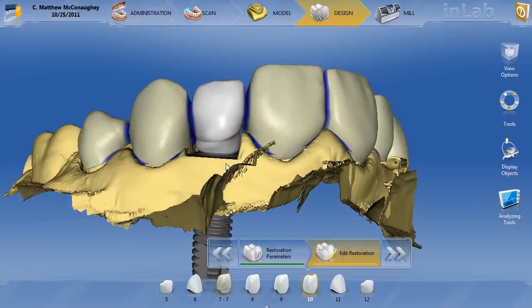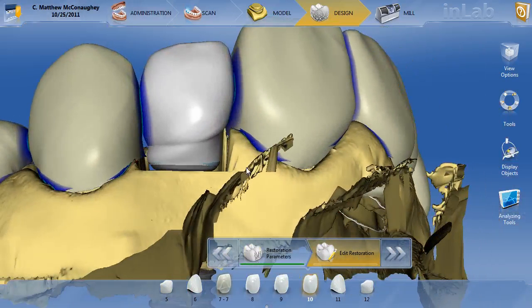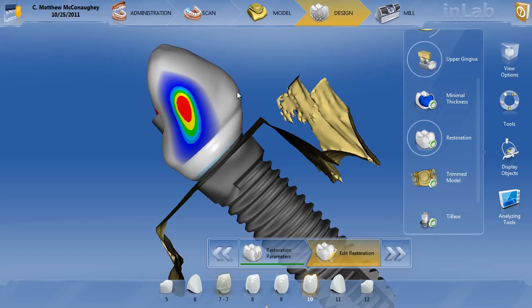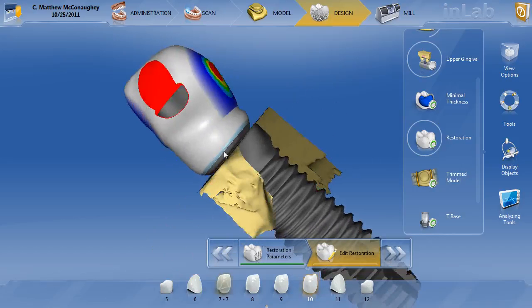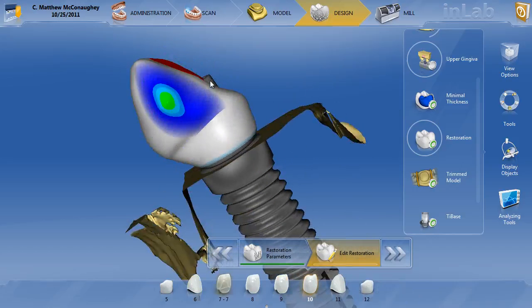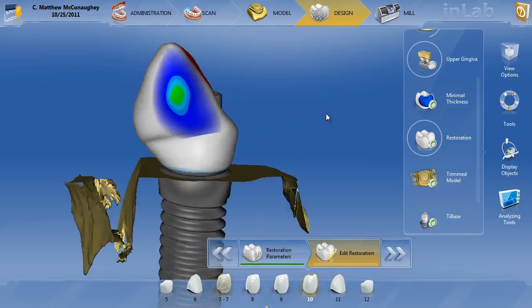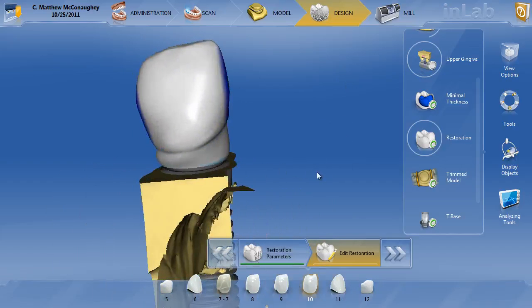Here's the final design of the full contour tooth before the split. It took actually quite some time. Basically I'm just using the two-dimensional shape tool and the form tool. Let me go ahead and trim the model — you can see what I did here is I basically formed a nice flowing emergence through most of it. I've got a little minimal thickness issue down here. I can already see my titanium base coming out, but that's just the nature of how this tooth is going to be. I've got the crown design roughly where I need it to be. I don't need to be overly exact here because we're not going to be milling the final restoration off this design.